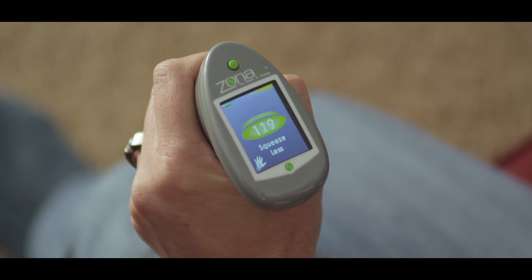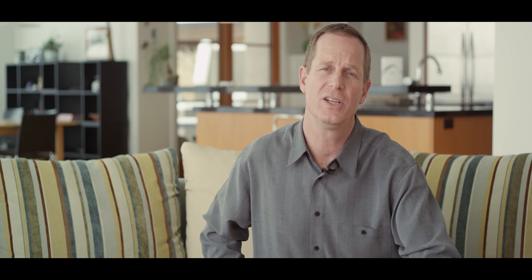The Zona Plus will give you visual and auditory cues if you're out of range. Work to keep the force indicator centered and showing hold. After you complete the first two minutes, take a well-deserved one-minute break. Then change hands and repeat the exercise with your left hand. To finish the session, repeat the exercise once more, first with your right hand and then with your left.